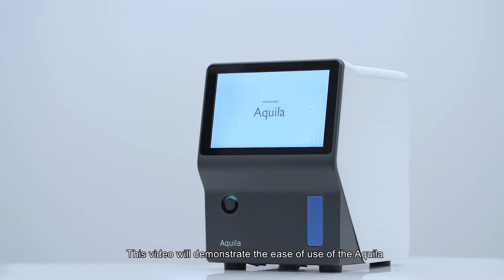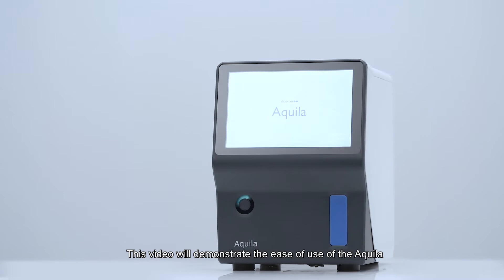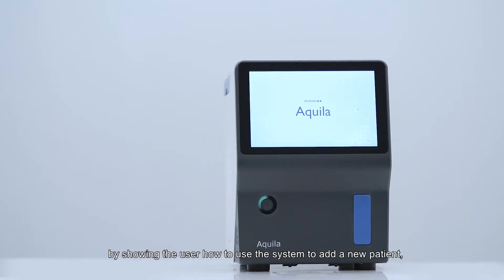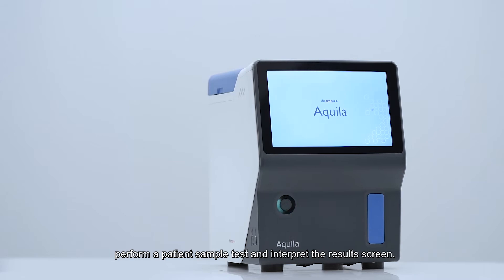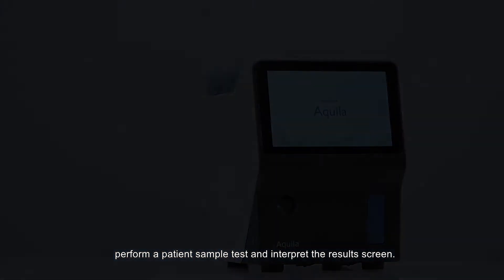This video will demonstrate the ease of use of the Aquila by showing the user how to add a new patient, perform a patient sample test, and interpret the results screen.